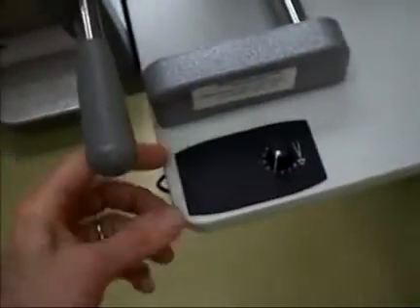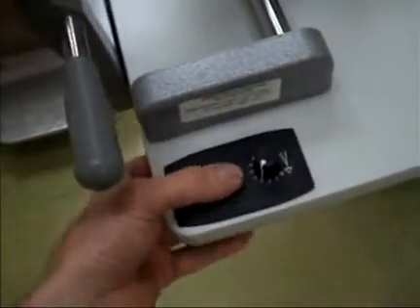So I figured it was the rheostat. I replaced the rheostat — there's a USB cable that connects from the rheostat to the transformer box. After I replaced the rheostat, it made no difference.